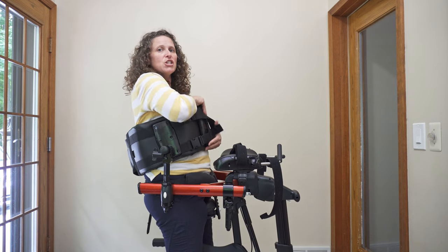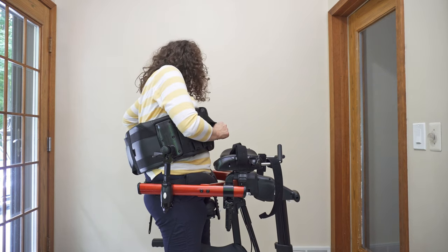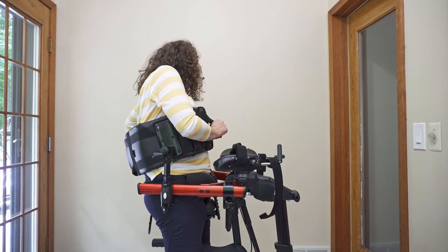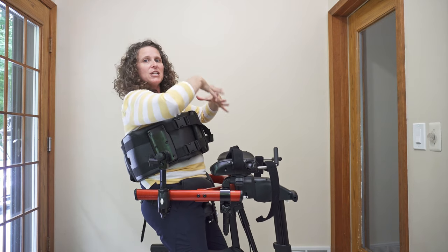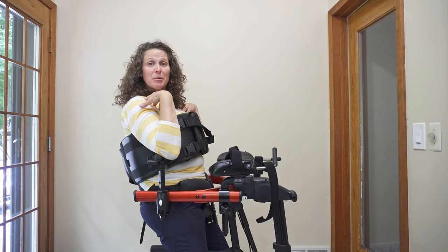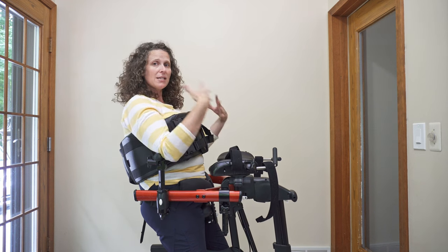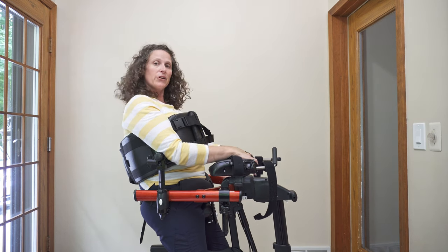I'm going to tighten them, so now my chest is up. What that does is it opens up the chest, making it a little bit easier for them to breathe, so that they can lift their head up a little bit better.